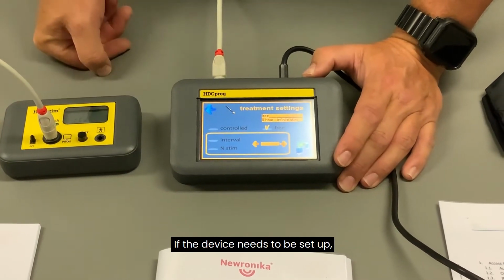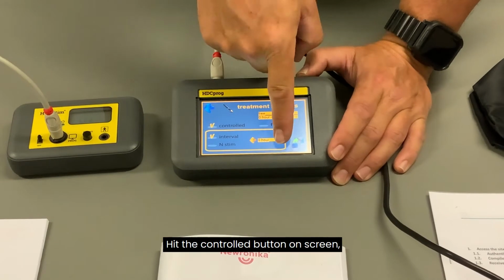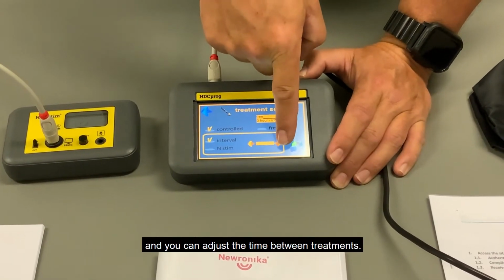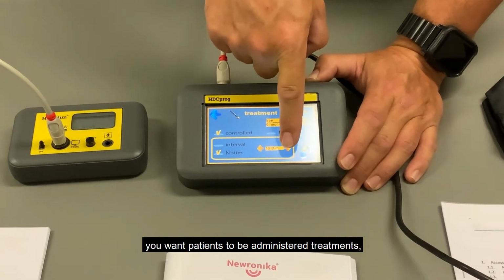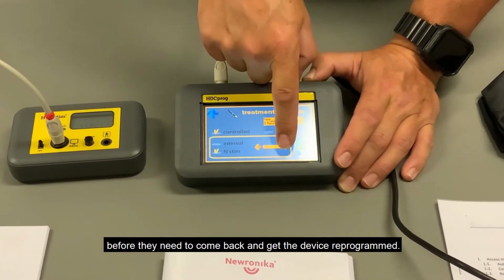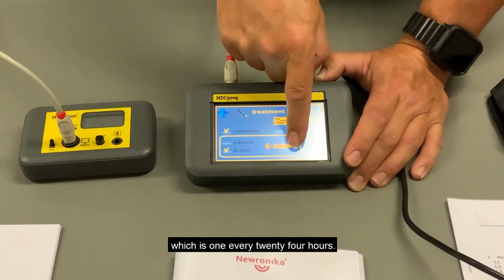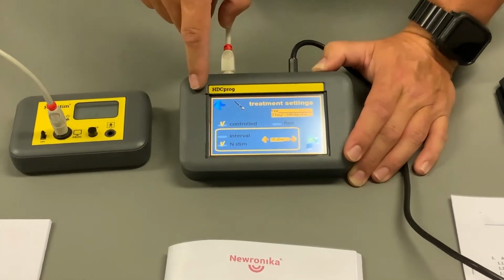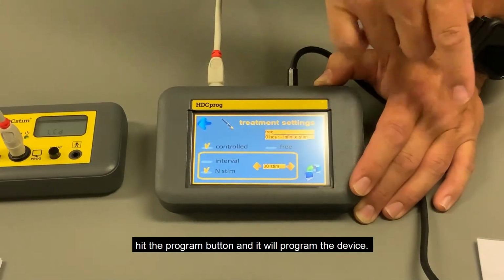If the device needs to be set up so that the patient can use it at home, hit the controlled button on screen, and you can adjust the time between treatments. You can also adjust how many treatments you want patients to be administered before they need to come back and get the device reprogrammed. You can set it to 30 treatments, which is 1 every 24 hours. Once you have the right settings, hit the program button and it will program the device.